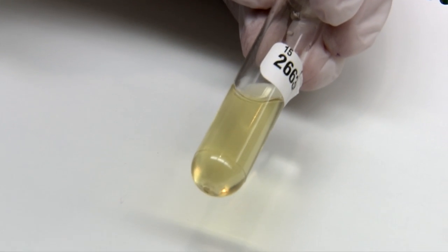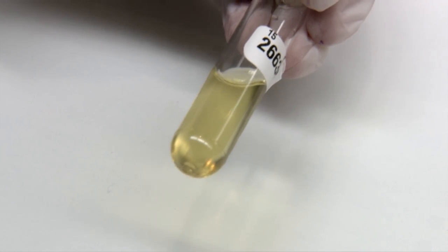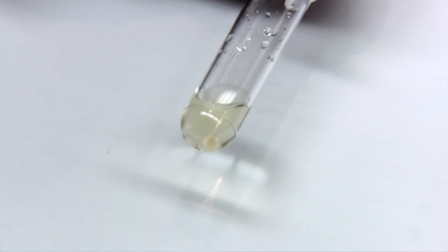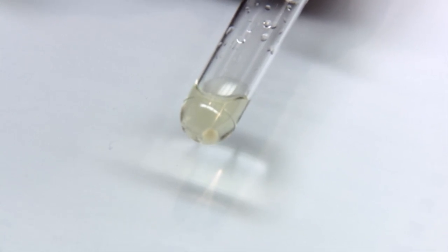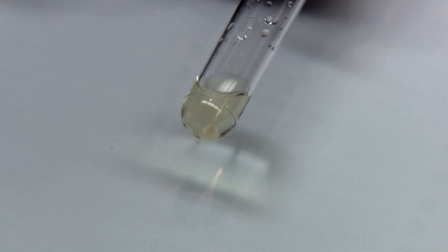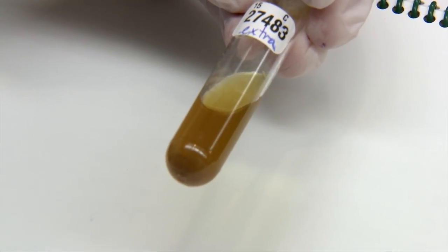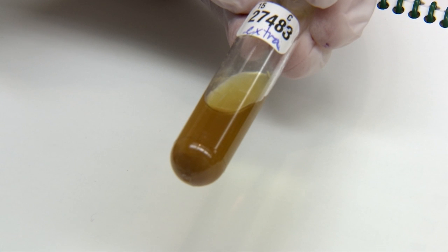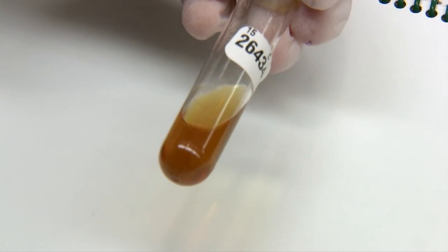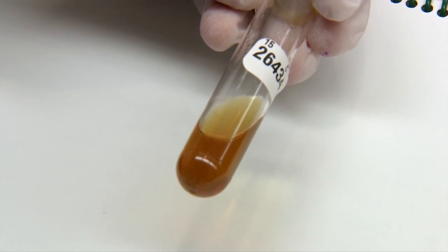Normal urine is a yellow colour, which is what the majority of your urines are going to be. You can also get a very pale, dilute sample where you can hardly see any colour at all. And then you can have amber coloured urine, which is usually bilirubin in the urine — it's a kind of brown-yellow colour.